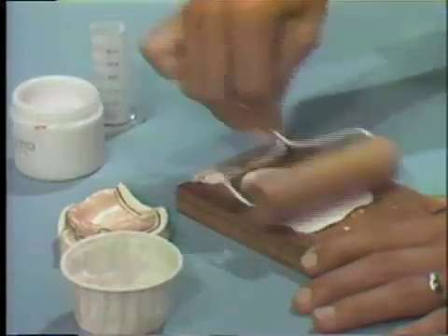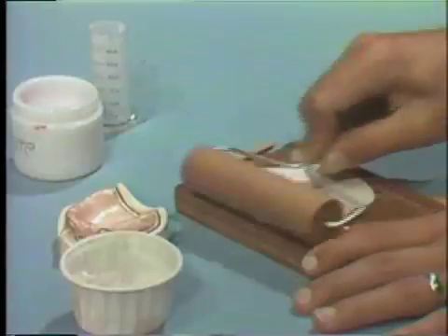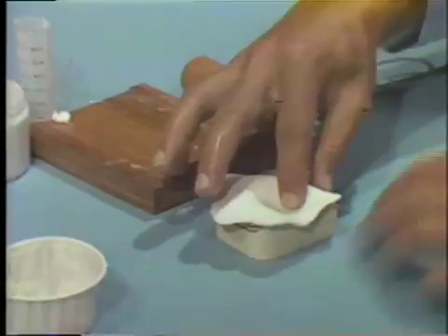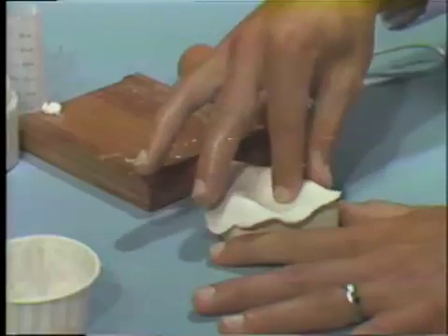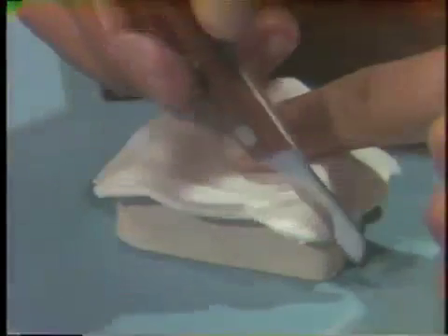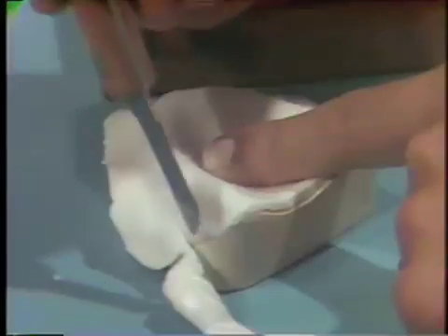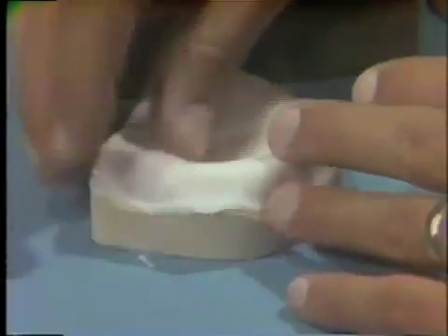Be careful not to roll it too thin. Carefully adapt the acrylic resin over the denture base outline on the diagnostic cast. Do not use too heavy finger pressure, or you might create areas that are too thin, especially in the areas of the labial and buccal flanges. Using a laboratory knife or a scalpel, trim the excess acrylic resin carefully while it is still soft. After trimming, re-adapt the flanges to the diagnostic cast.